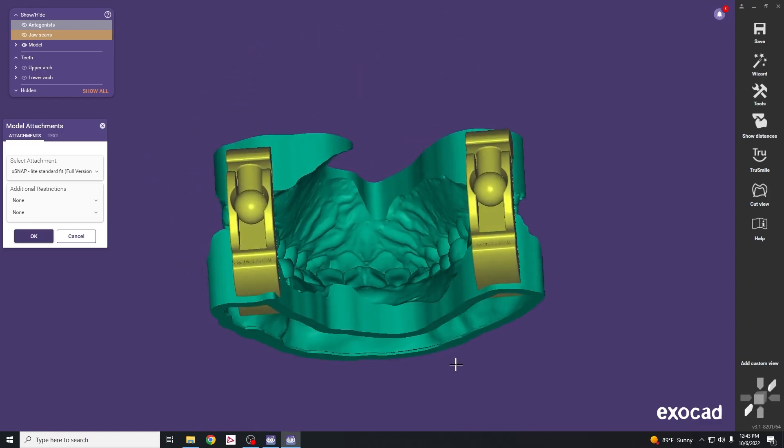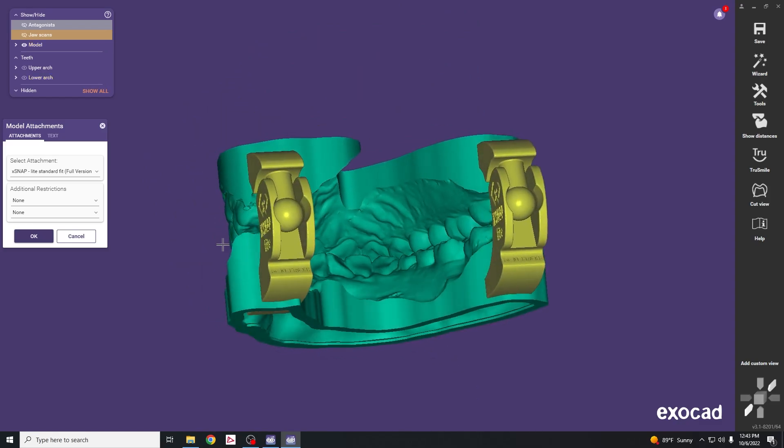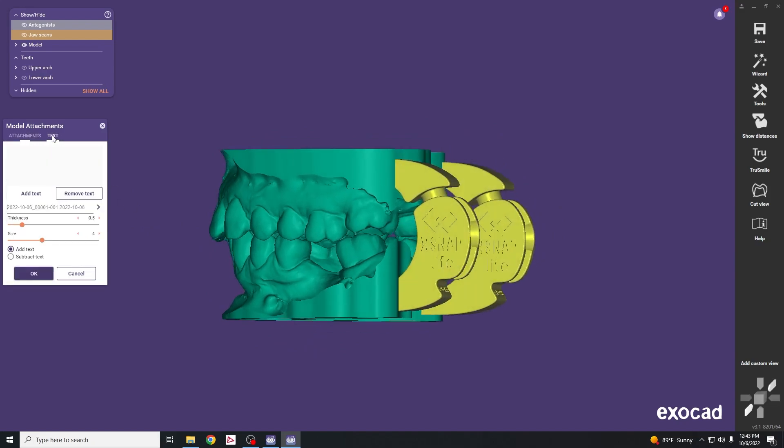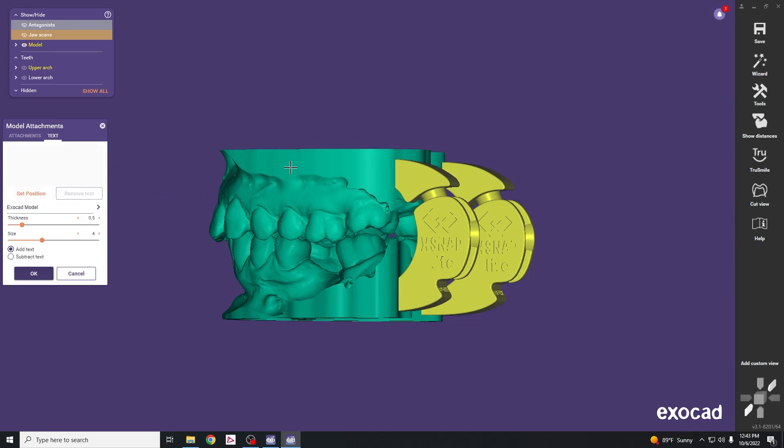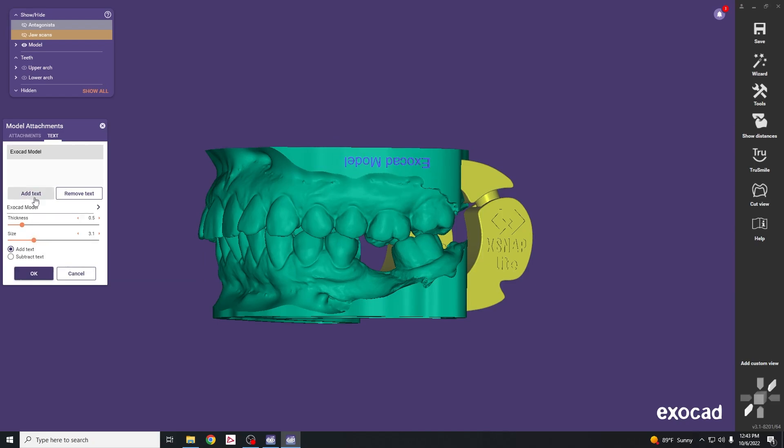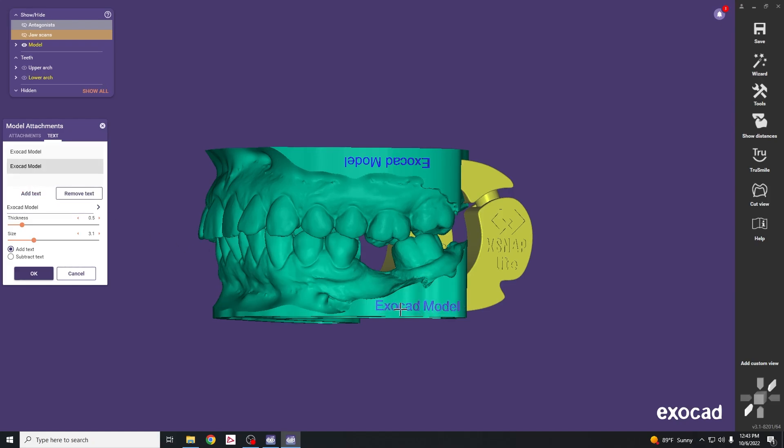Once these are attached, click on text to add our patient's name. Select all and copy. Click add text, then click on the cast to add the name. You can change the size if it doesn't fit well. To add it for the bottom, hit add text again, paste the name, click on the bottom cast and put it in the correct position.